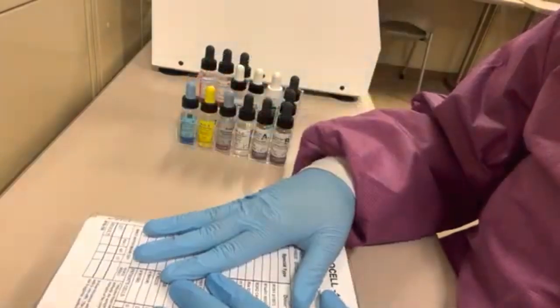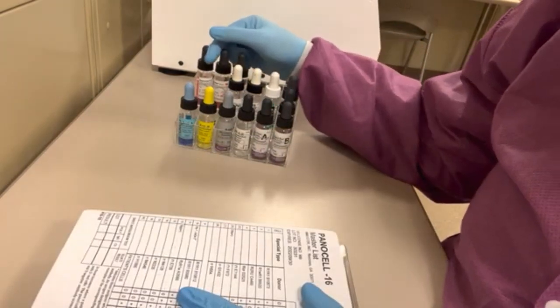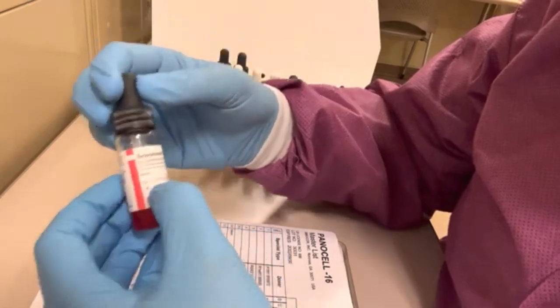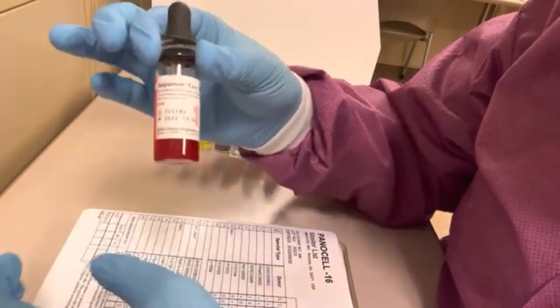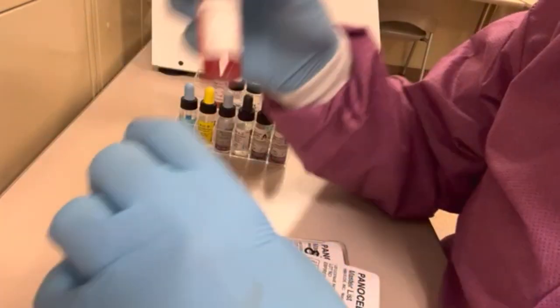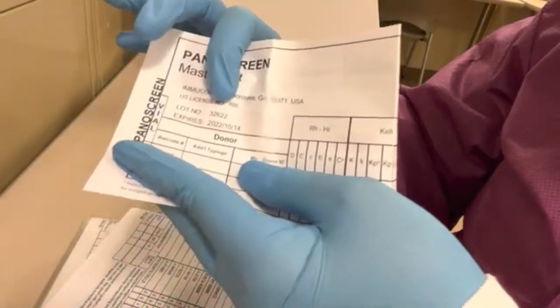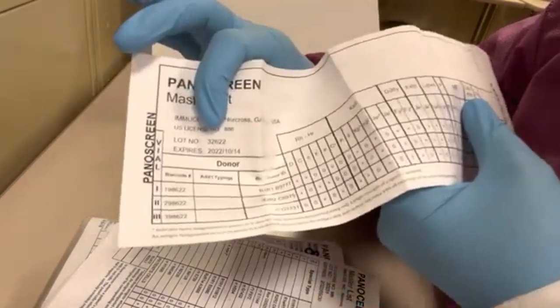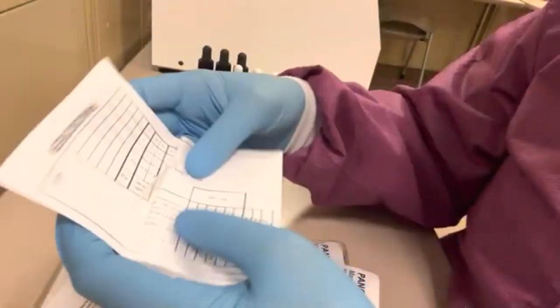An important detail about panel cells and screening cells is the lot number. For example, one lot number here is 3SS184. All screening cells and panel cells have lot numbers, and you must ensure the lot number on your cells matches the lot number on the panel identification sheet you're using for crossouts, because the antigen profiles are not necessarily the same from lot to lot. This is something you definitely need to pay close attention to.